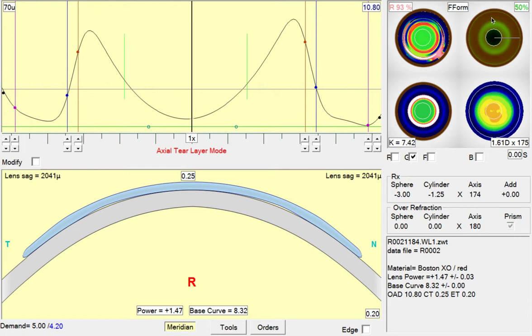Because it seems like the periphery of the lens aligns fairly well with the cornea, we won't change anything out here. We'll just make the change here at the IC control point. Currently at 823.